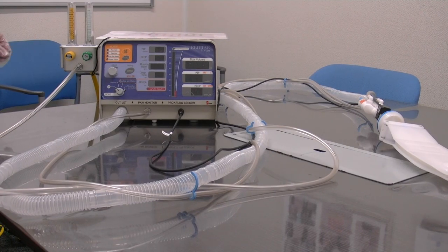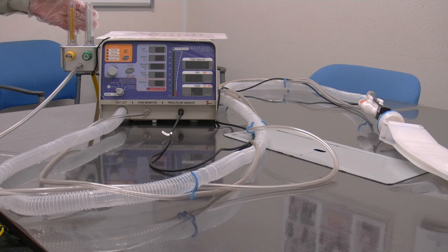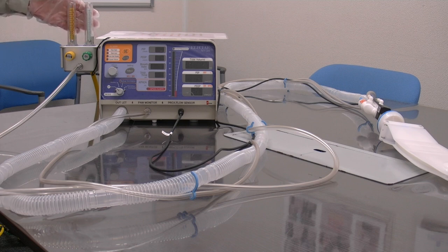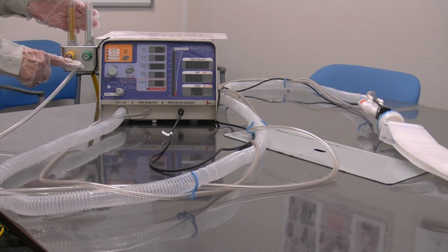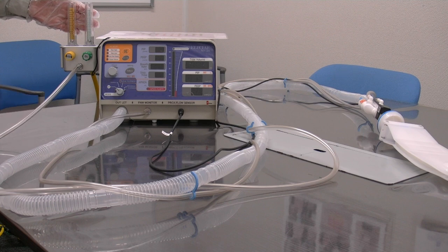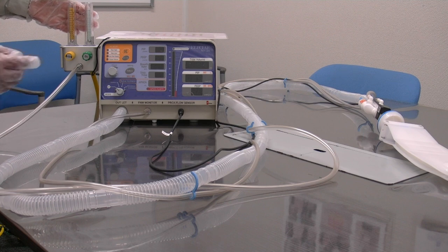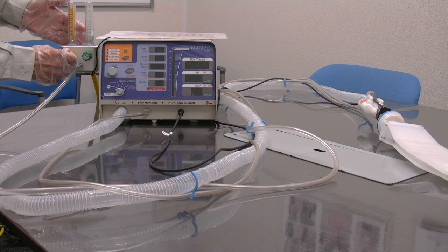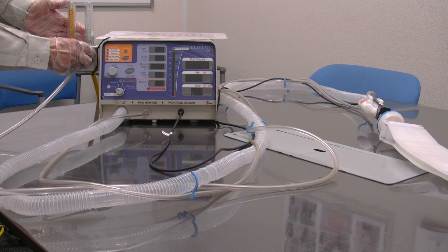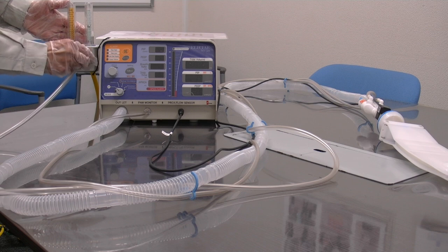Let's look at the blender in more detail. You have fresh gas flowing from the blender here. By adjusting the analogue blender's knobs, you can change the blend of air and oxygen in the fresh gas.